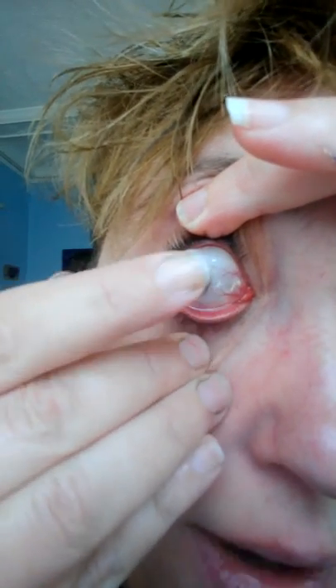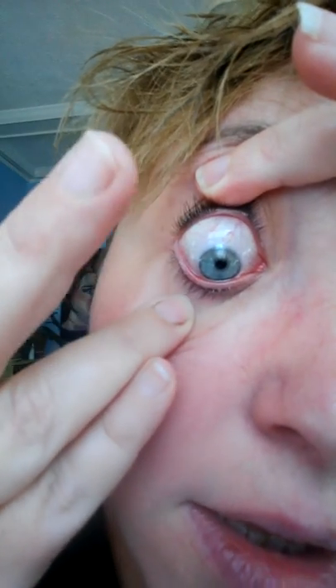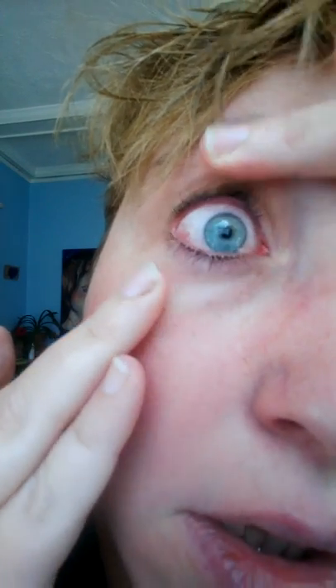Sometimes it takes a few tries — okay, I can see some cat hair. There we go. Now if you're wondering, you can see the contact lens going in. There are a little mascara particles — yeah — there, that's how you do it. So I hope that you definitely consider getting contact lenses.